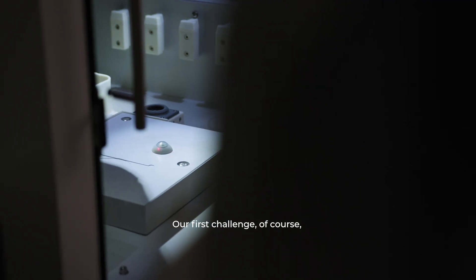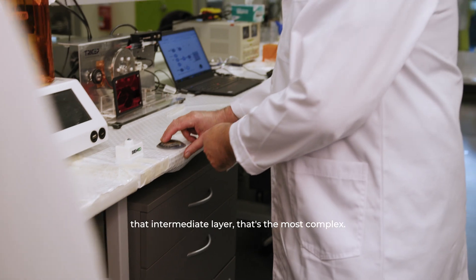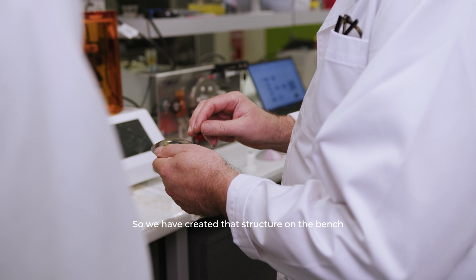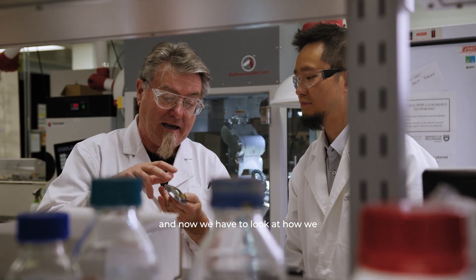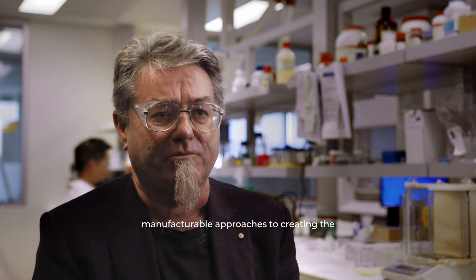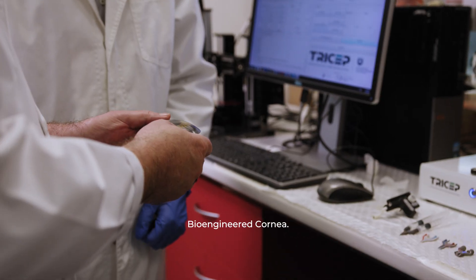Our first challenge of course was to mimic that stroma layer, that intermediate layer that's the most complex. So we have created that structure on the bench and now we have to look at how we can actually build scalable, manufacturable approaches to creating the bioengineered cornea.